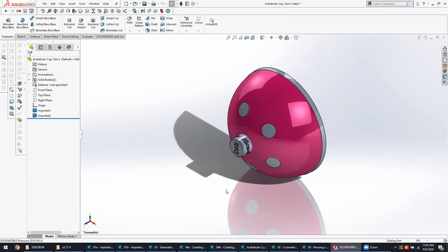The classic NTOP design workflow for orthopedics is fairly intuitive and consists of four major steps, and we'll be walking through each of these steps so you can get a better understanding of what it's like to use NTOP platform for this application.